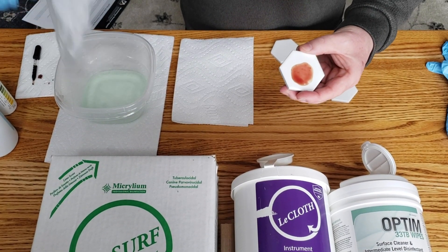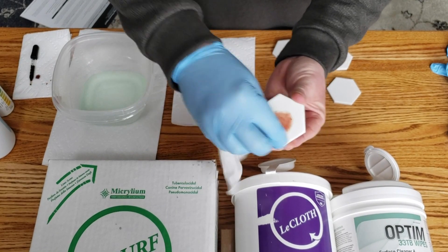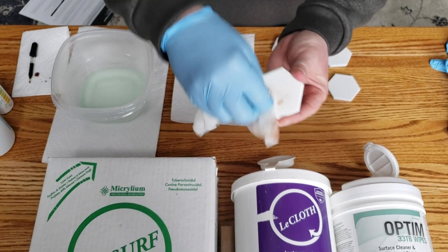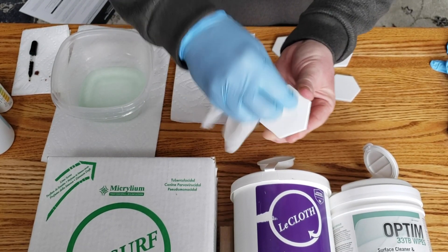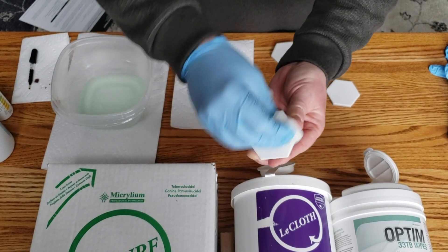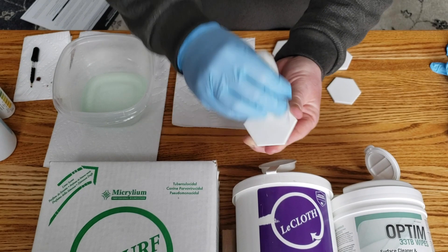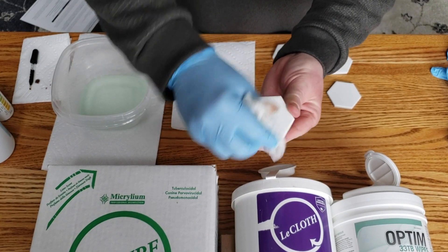We soak the wipe, get it nice and wet, and clean the dried blood — wiping for a five-second count. Obviously there's still quite a bit of residual blood, so we'll keep going until we clean the surface completely, continuing the count all the way up to 30 wipes.